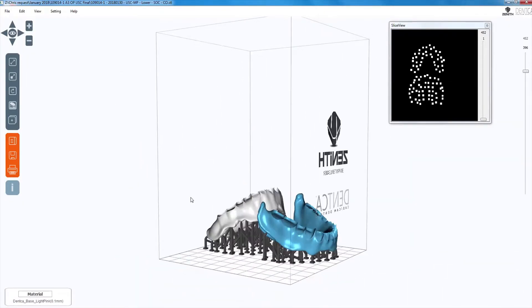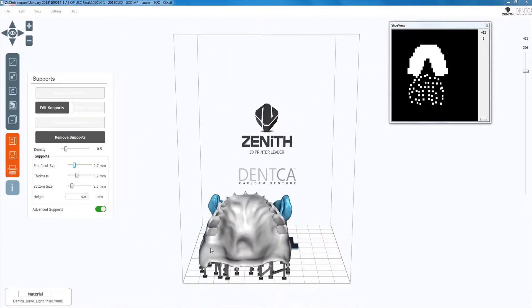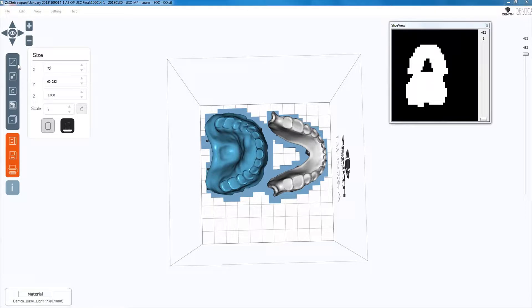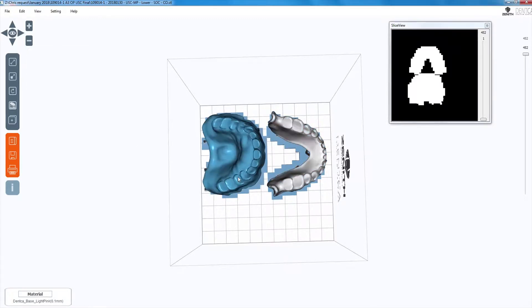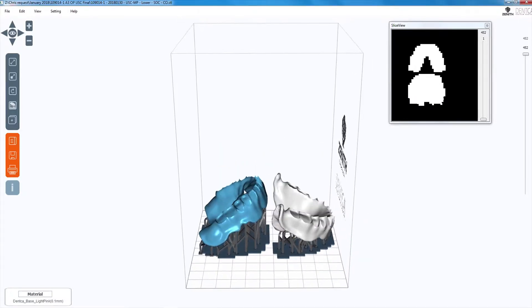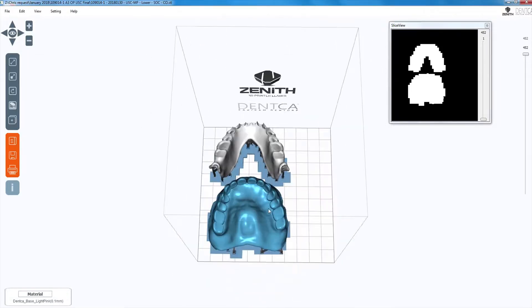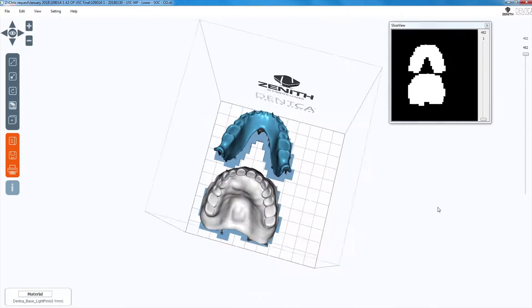Once all supports have been generated, click on the same button below the arrow and click on add base support. It is recommended that you then adjust the width and length of the base plate by clicking on the double arrow and adjust the plate size to save up material. When finalized, your design should look like this. It's highly recommended to save your design in case you want to reprint in the future.